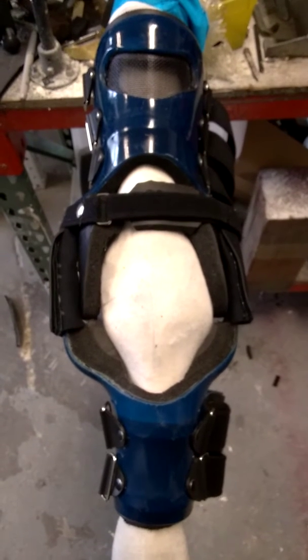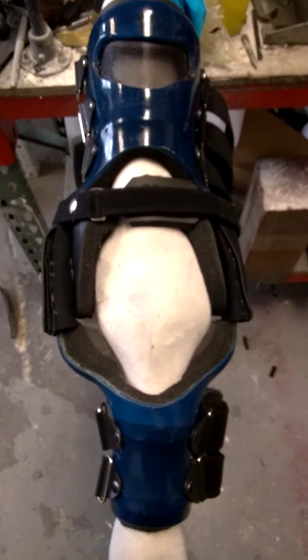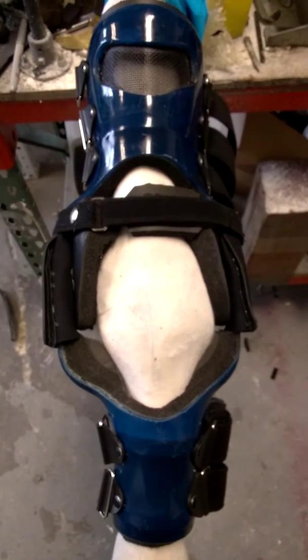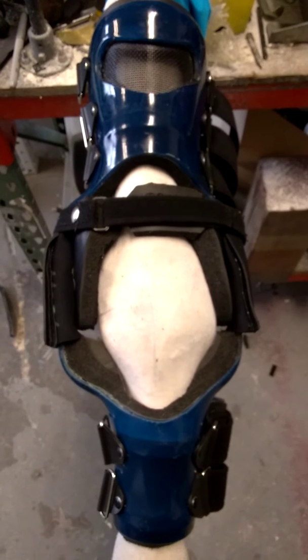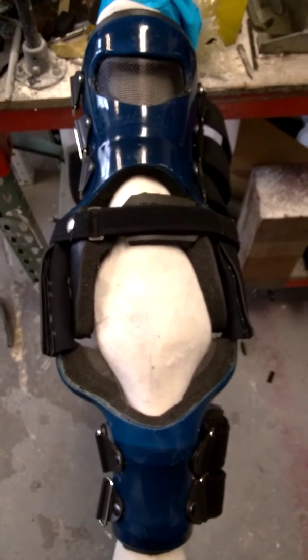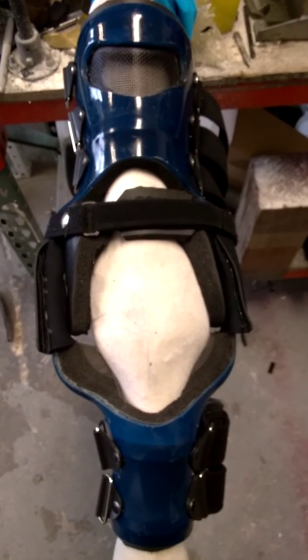This is a good support brace built to last, made of high quality materials, made in the United States. You can check our other braces out online at www.VeterinaryRehabTechnologies.com.